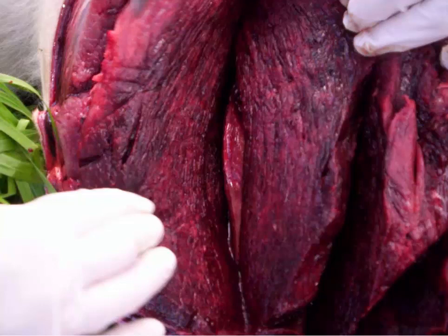Slide number 9. A lot of classics in this test, and that's a good one because I'm a little out of practice, as many of you are, since it's been almost 2 months since I've done my last Gross Path Challenge. All I want from you from this tissue from an ox is a morphologic diagnosis and a cause.